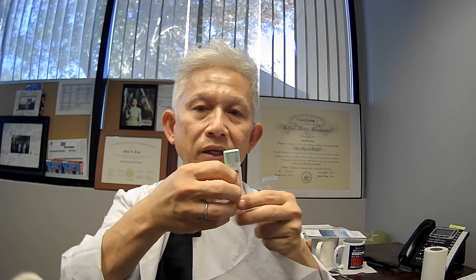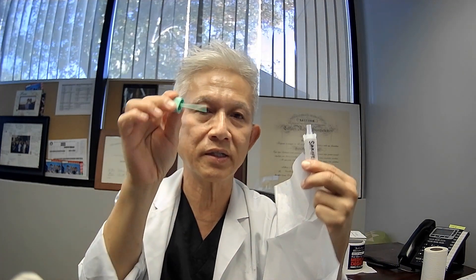All you have to do is use this container. In the morning, when you go and do your business — number two — to do it correctly, you have to put this paper in the toilet, and then use the stick to touch the stool.